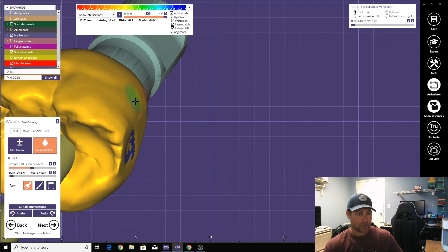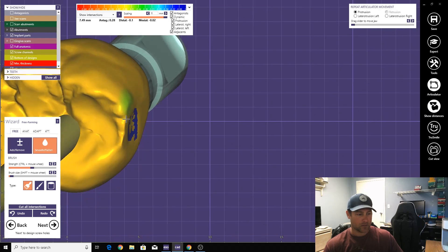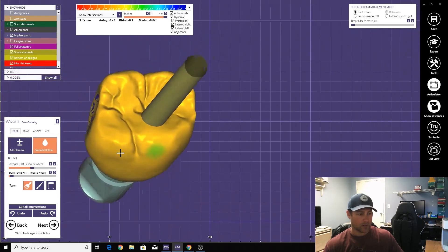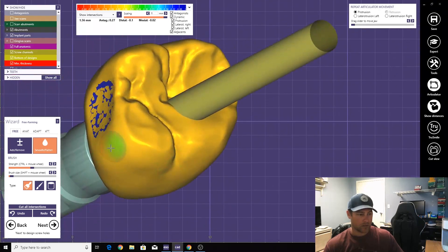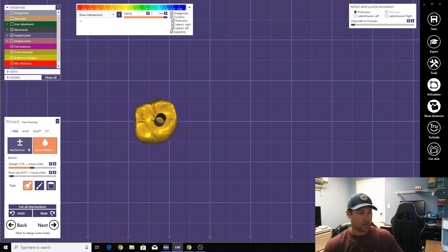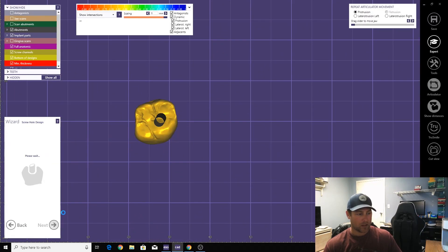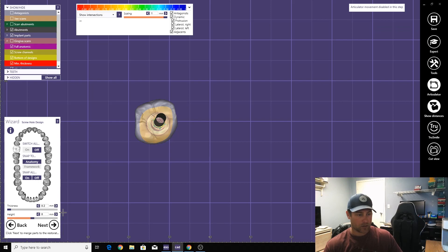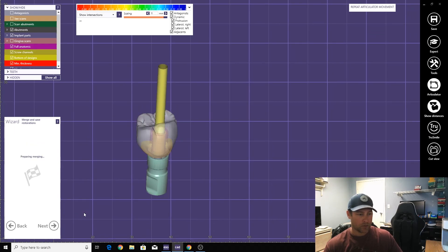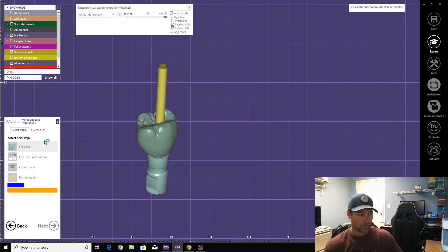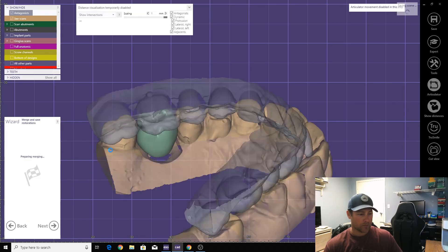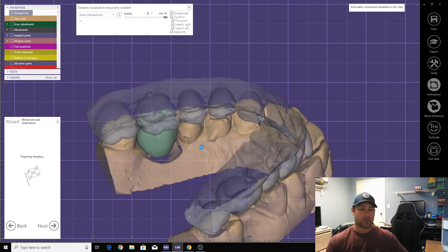Okay, here, here, here, here we go. And next step, exit. We'll cut the hole in it. Boom. Merge and save. Boom. And then you're done.